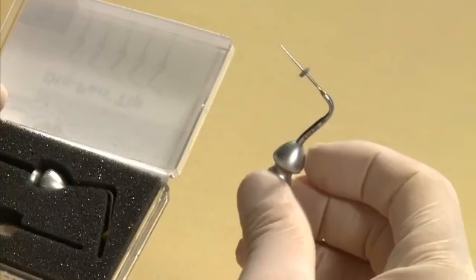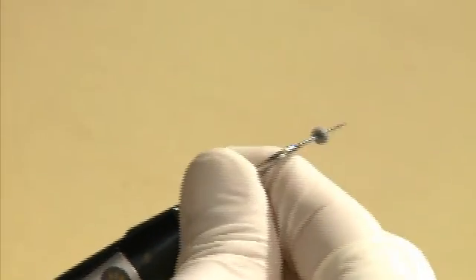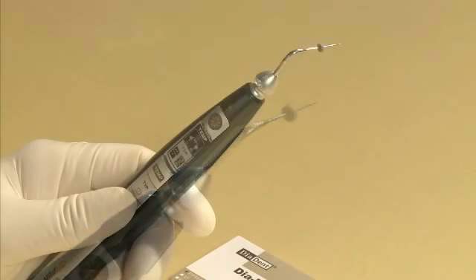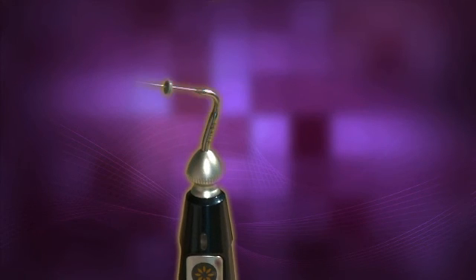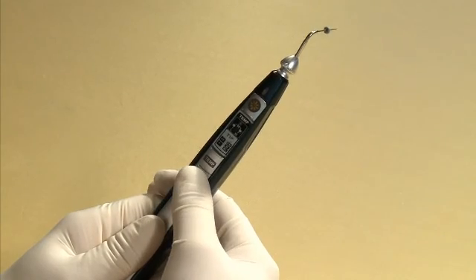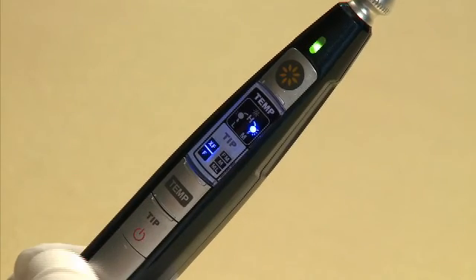And fine-medium pen tips. Insert the pen tip into the handpiece until it securely snaps into place. The pen tip can be adjusted into six different positions. After inserting the pen tip, press and hold the power button for one second to turn on the device.